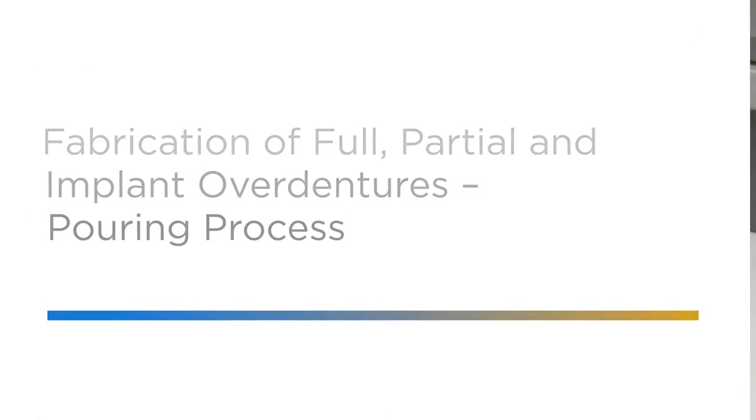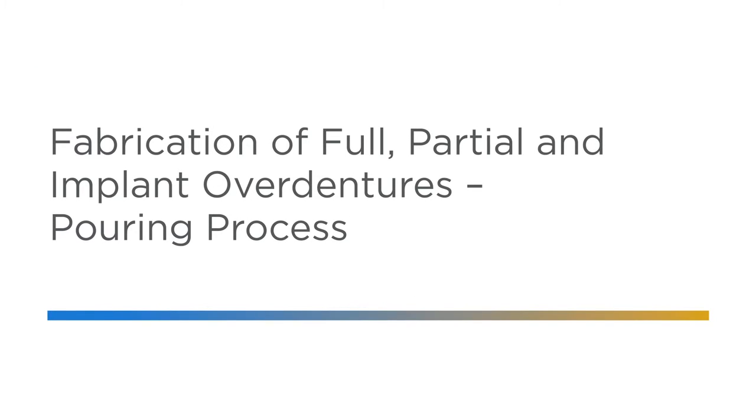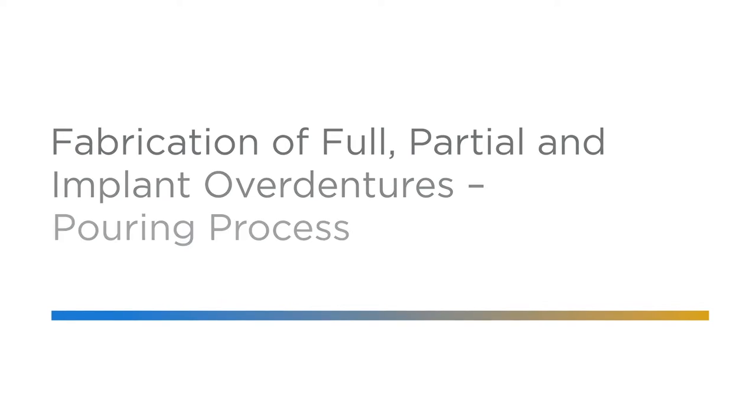This tutorial demonstrates the six steps involved in the pouring process for fabrication of full and partial dentures. Let's get started.